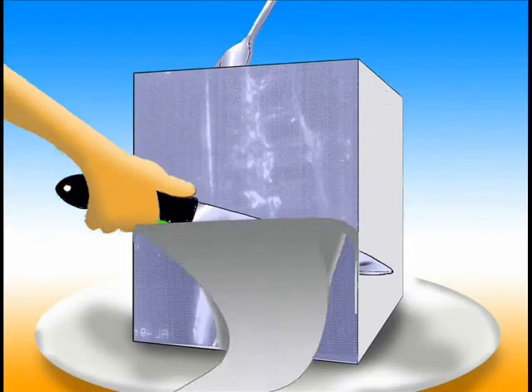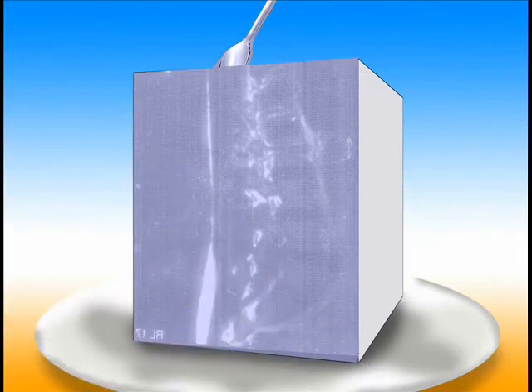Despite all the technology and mathematics that went into making the image, it still requires considerable experience of anatomy and pathology to read the image and diagnose a problem.